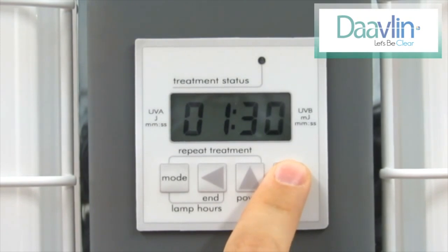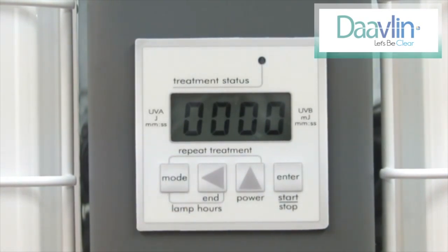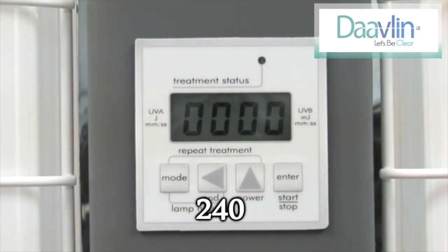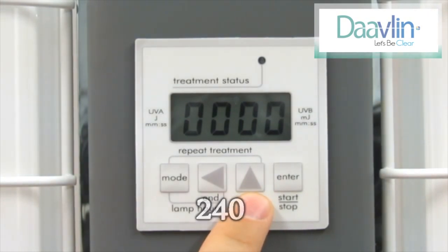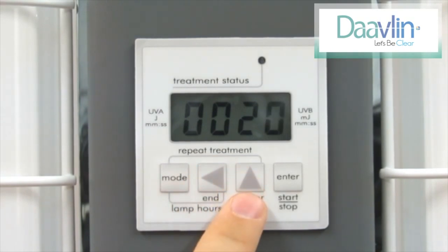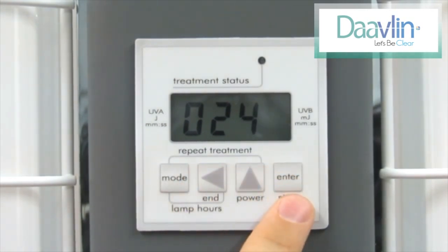After you've locked in your backup time, hit the mode button to switch to the dose entry screen. This screen has four zeros with no colon in between them. We will enter the dose the same way we entered the backup time. Continuing our example, the dose will be 240 mJ. Enter the 2 by pressing the up arrow twice. Next, press the left arrow one time to move the 2 a space to the left. Now enter the 4 and move it to the left. The zero is already there, so press the enter key one time to lock in the dose.